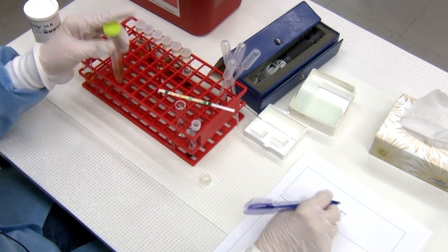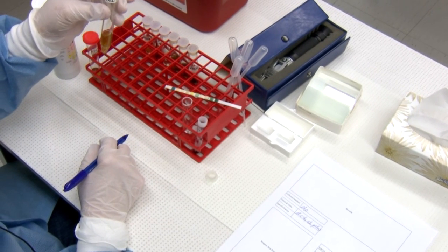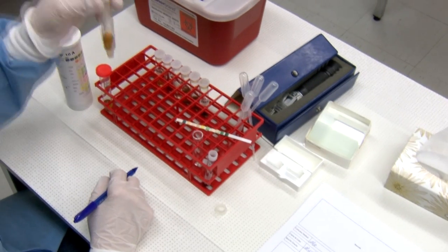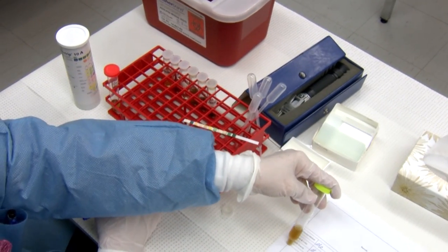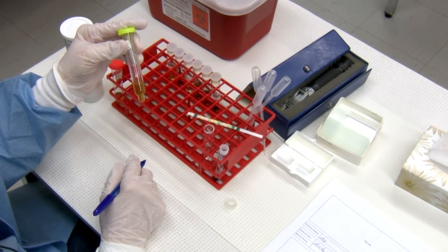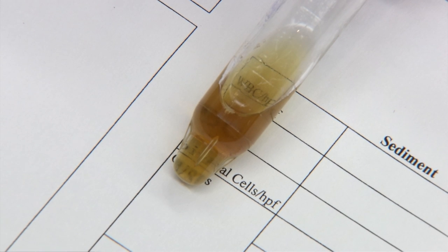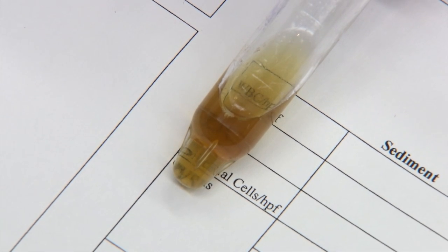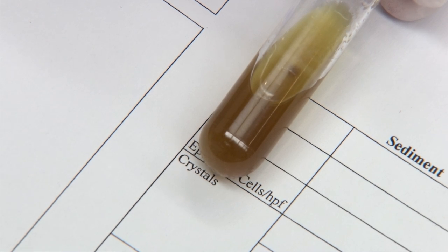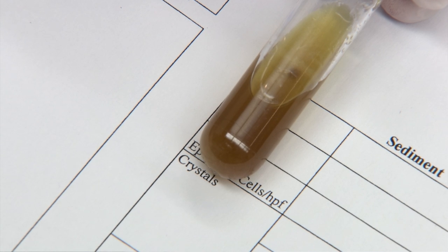For turbidity, you assess it by holding the sample to the light or over paper with some printing on it. Clear means you don't see any particles. Slightly cloudy means just a few particles. Cloudy means quite a few particles but you can still make out printing. Turbid means you cannot make out any printing at all — that's the difference between cloudy and turbid.